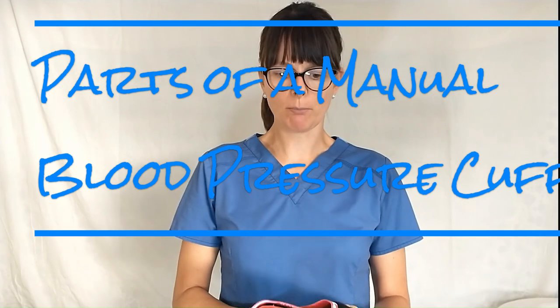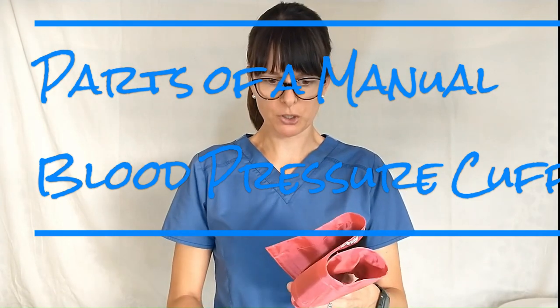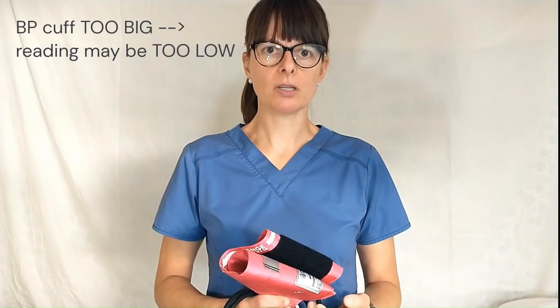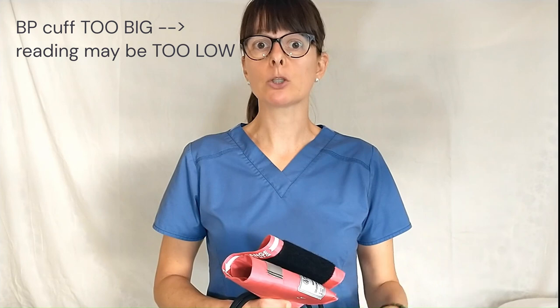Let's take a look at the different compartments or parts of the blood pressure cuff first. It is very important that you actually have the correct size blood pressure cuff for your patient, because if the blood pressure cuff is too big for the patient, the blood pressure reading may be too low.